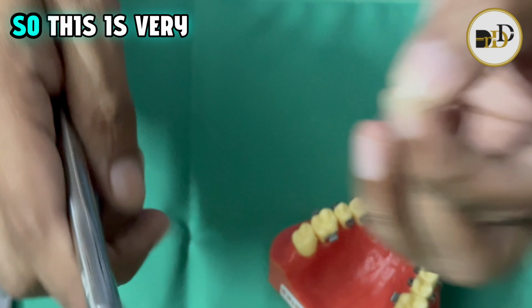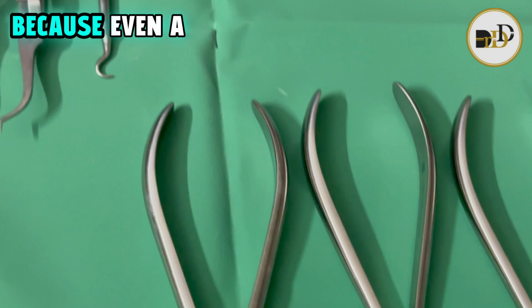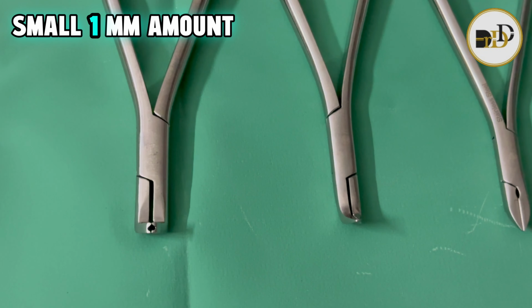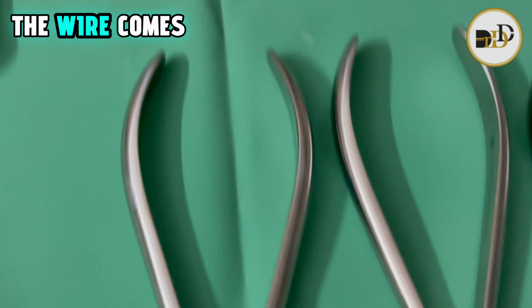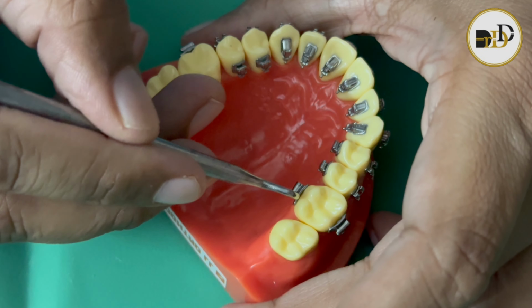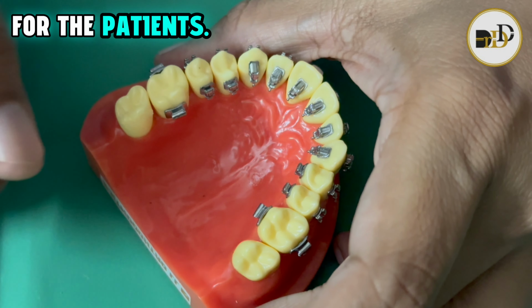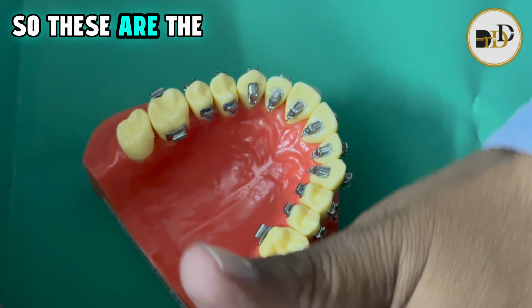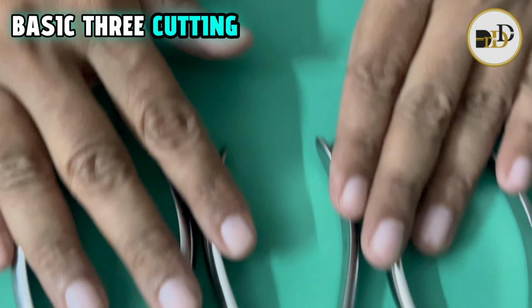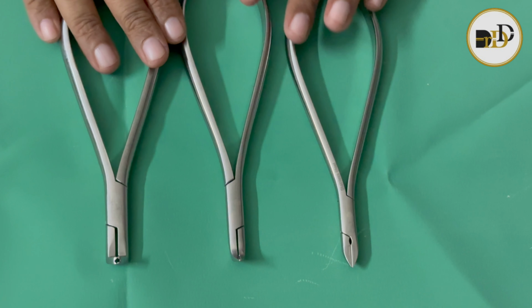This is very important when we are working in the lingual, because even a small 1 mm of wire extending distal to the molar tube will create severe irritation for the patients. So these are the basic three cutting instruments which will be useful in lingual practice.